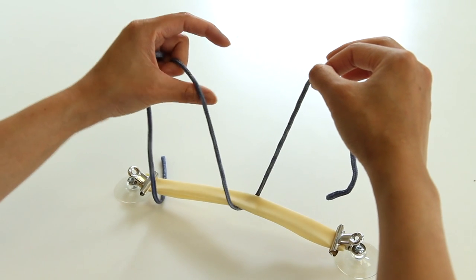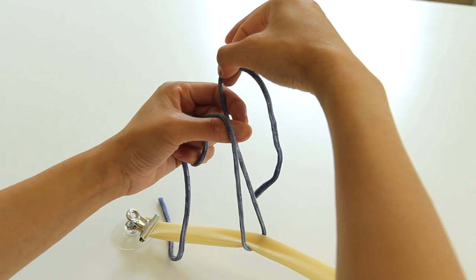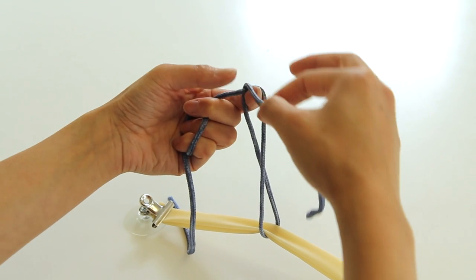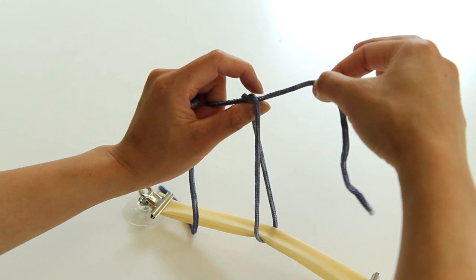To lead with the thumb, hook the post over the thumb. Move the tail between the thumb and forefinger, then pinch the thumb and forefinger together. Roll the non-dominant hand, open the thumb and forefinger, and now firmly pinch the tail. Crisply pronate in order to flip the tail through the loop — this forms the knot. The next step is to lay the knot down.